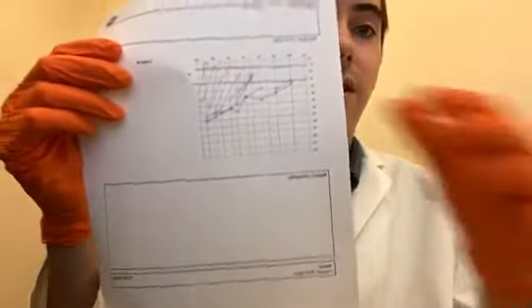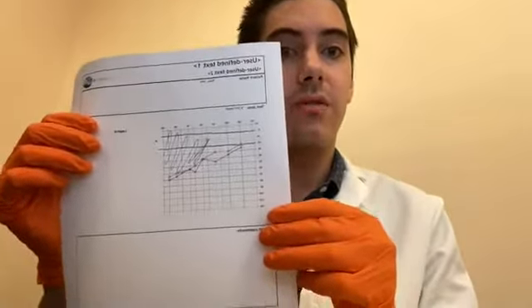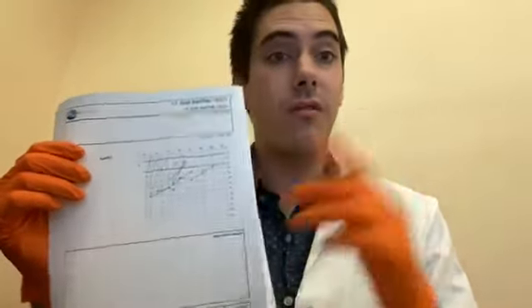When you have a degree of moderate hearing loss — which this would be called a moderate hearing loss — you're going to be missing out on a lot of what people are saying, having to ask them to repeat, and that's going to be very difficult for you to understand them. Once we take a look at this report, it allows us to tell if you have a hearing loss, what type of loss you have, how severe it is, and then it allows us to program hearing aids specifically fitted to your hearing loss.